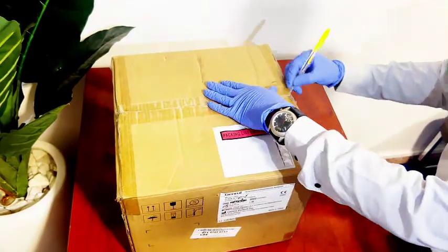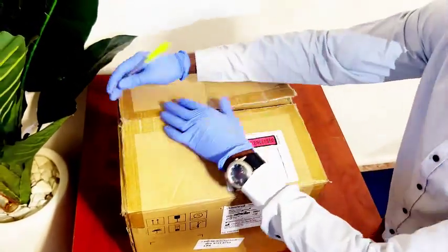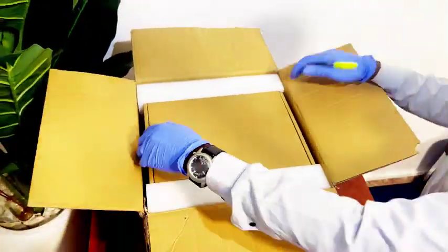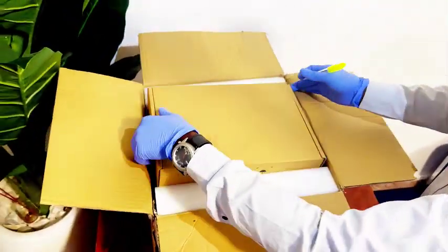You have to remove the tape, open it up gently, and remove the packing side.